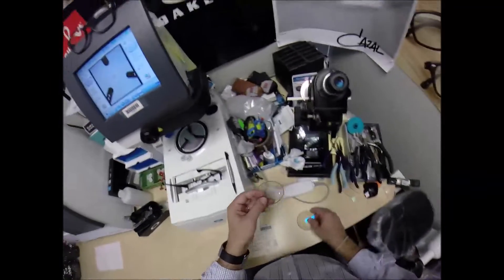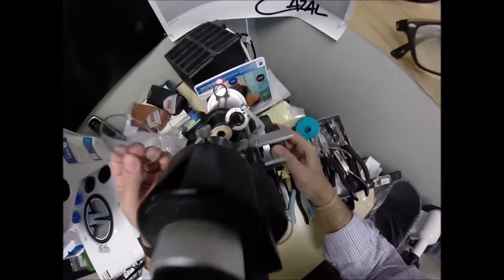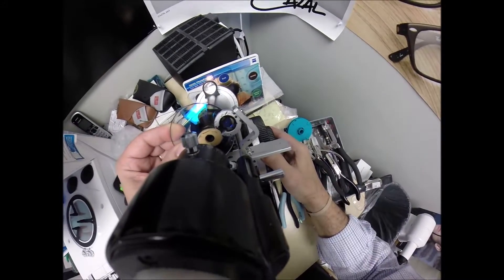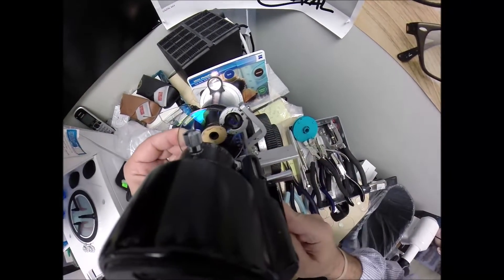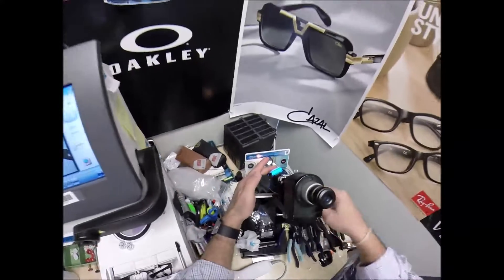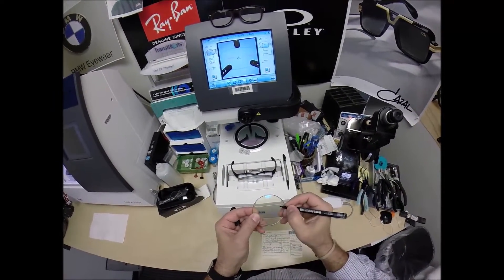I've got a 50-50 chance of figuring out which one is the right lens quickly. I'm feeling the lenses — this one feels skinnier than this one. Put the power drum on minus one, rotate the lens. It's coming in — let's check the astigmatism correction: minus 175. That is the right lens. When you've been doing it this long, you can just tell by the feel. Let's put three dots on your lenses — uno, dos, tres. That's the right lens.